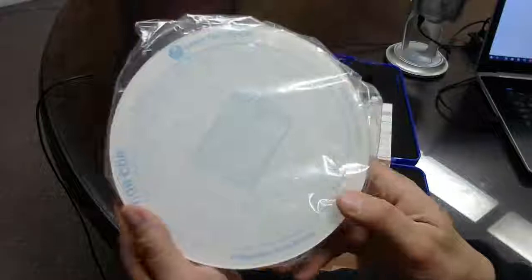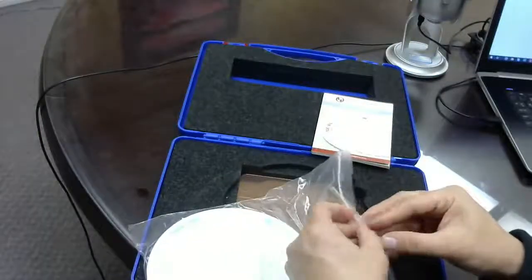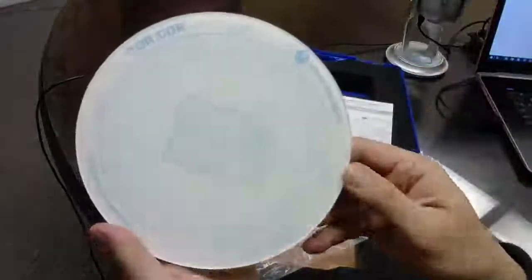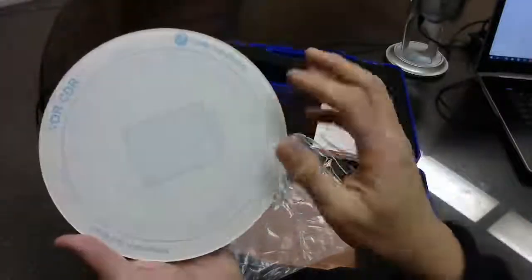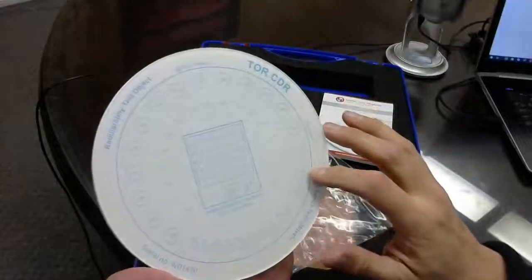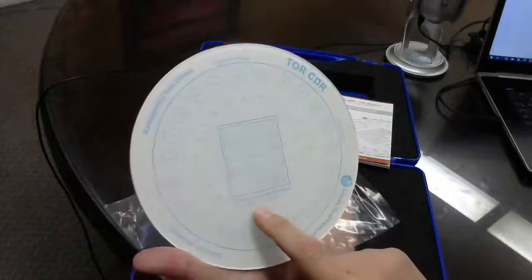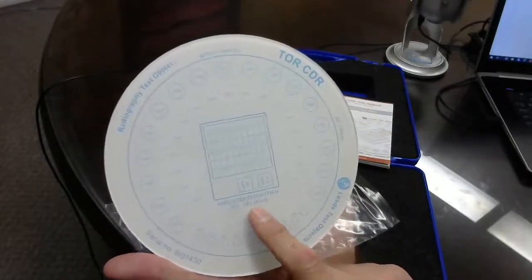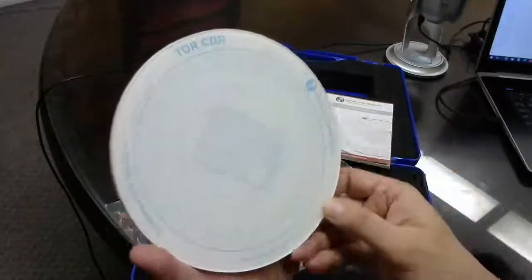This is the actual test object itself, which would be used to test the x-ray unit. You can see it has all the different test objects surrounding it, as well as the resolution pattern — 0.5 to 14.3 line pairs per millimeter. You can check the specs of course.